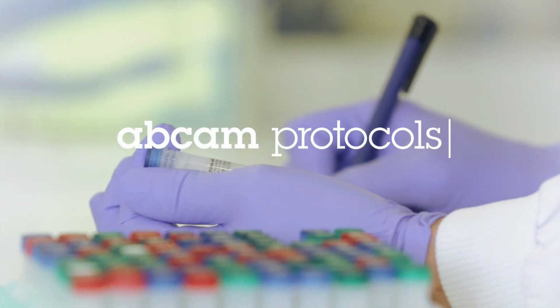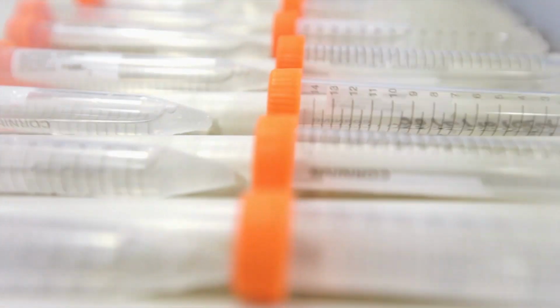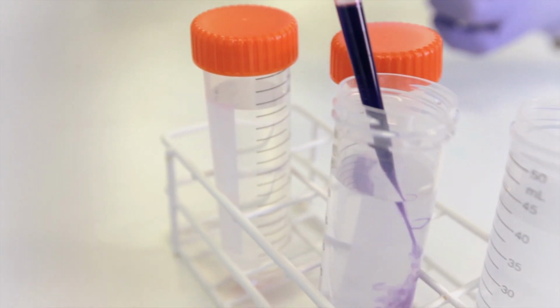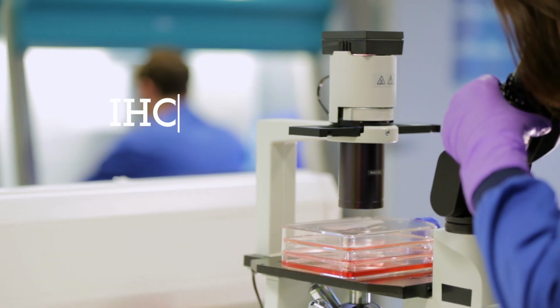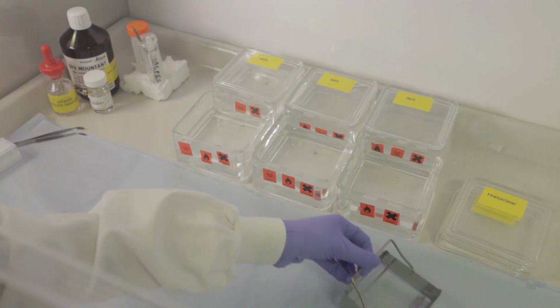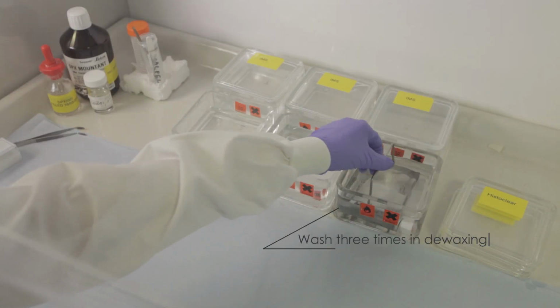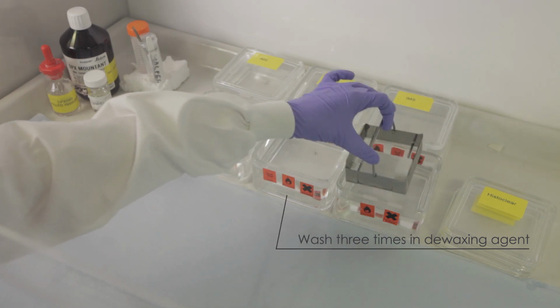Once tissues embedded in paraffin wax have been sectioned and transferred onto microscope slides, they can be treated with a variety of stains and antibodies. This video will demonstrate the staining procedure. Most staining solutions are aqueous, therefore the wax has to be dissolved and replaced with water before staining can commence.